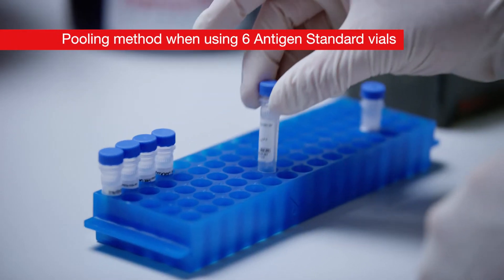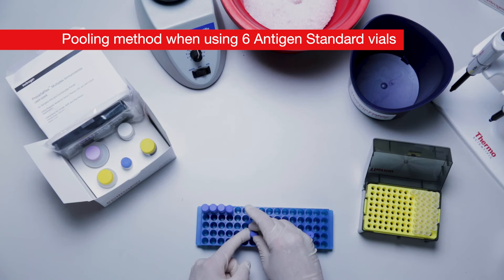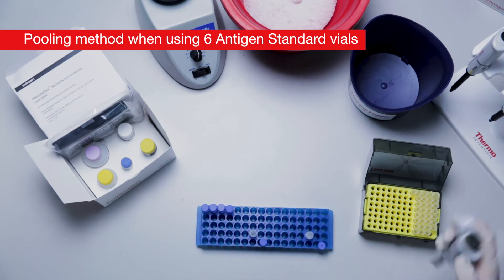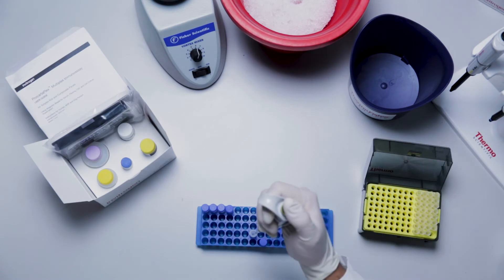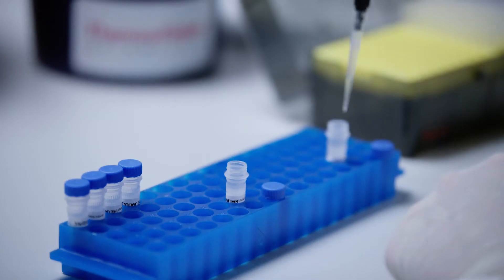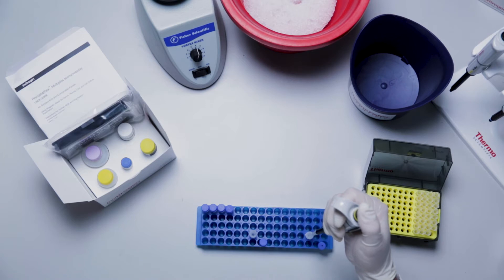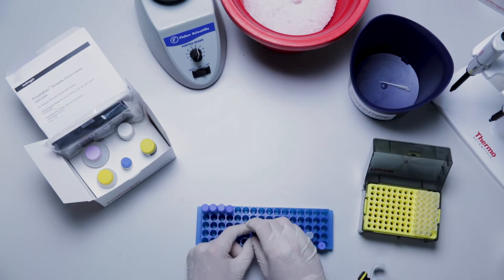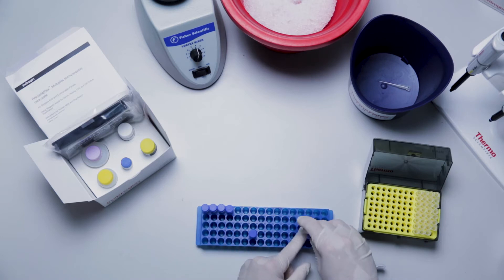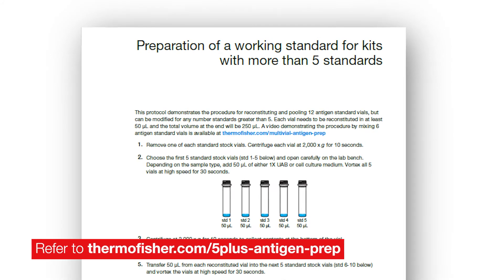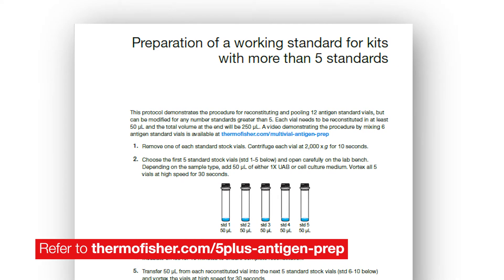Transfer 50 microliters from one of the standard vials into the sixth standard vial. If you are working with more than six antigen standard vials, refer to the procedure shown here.